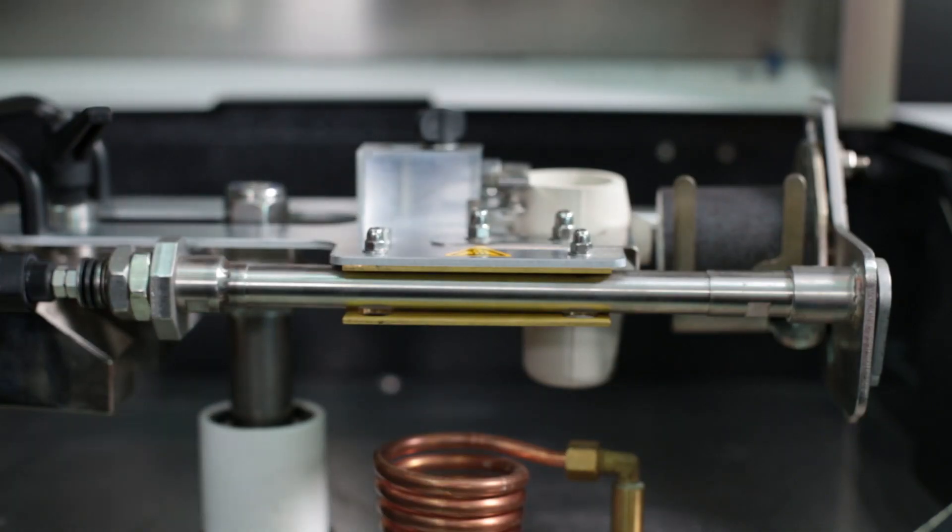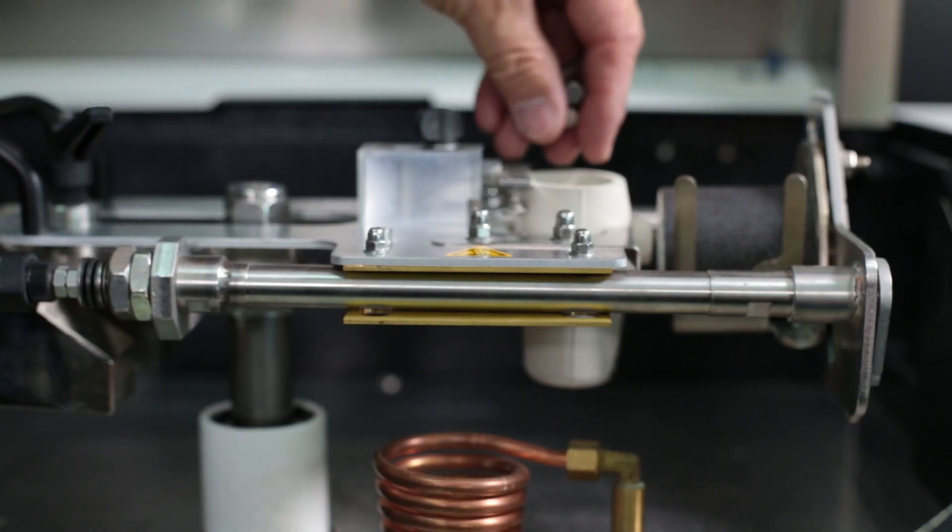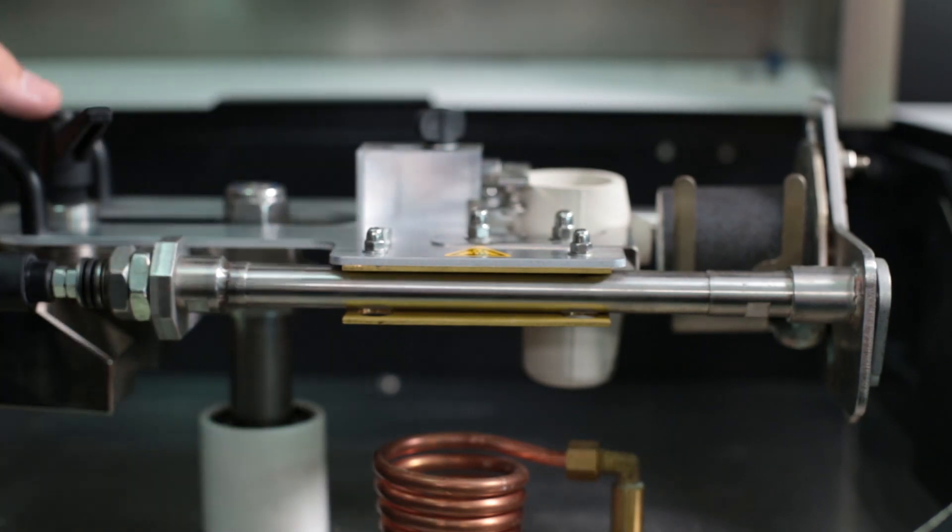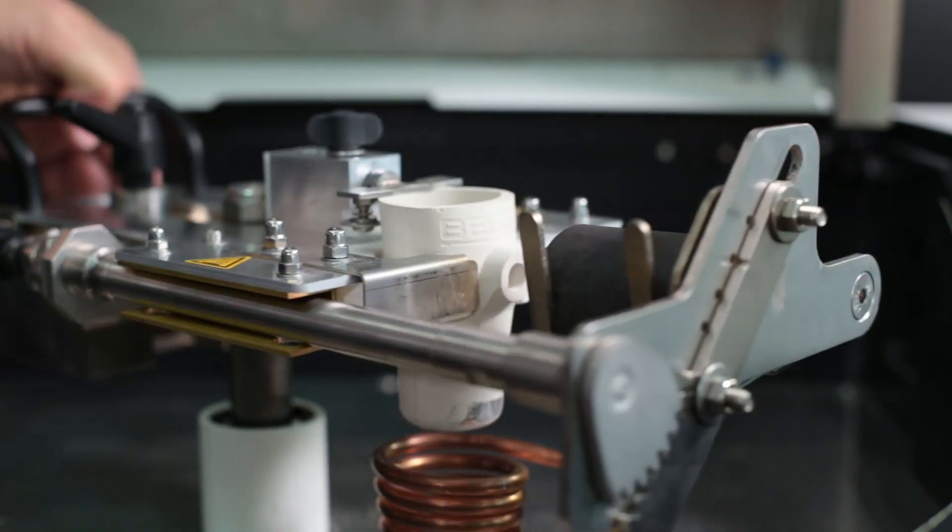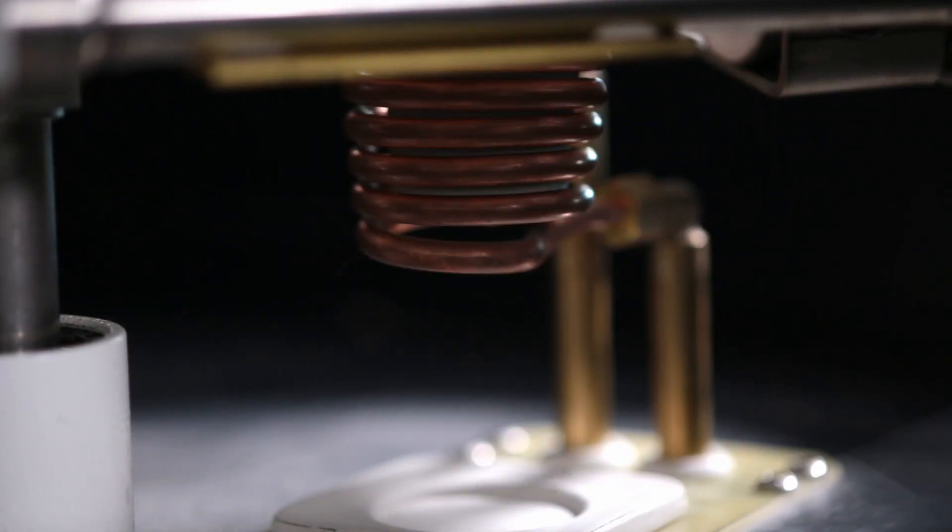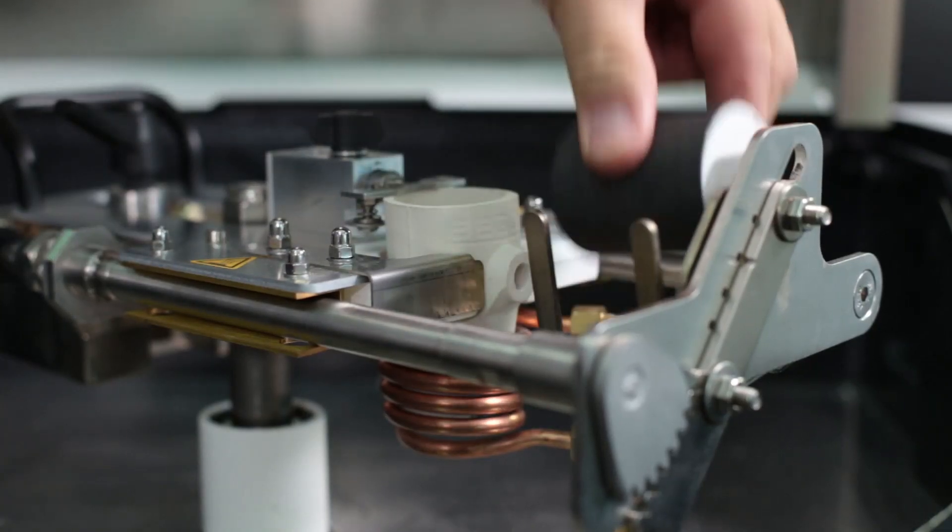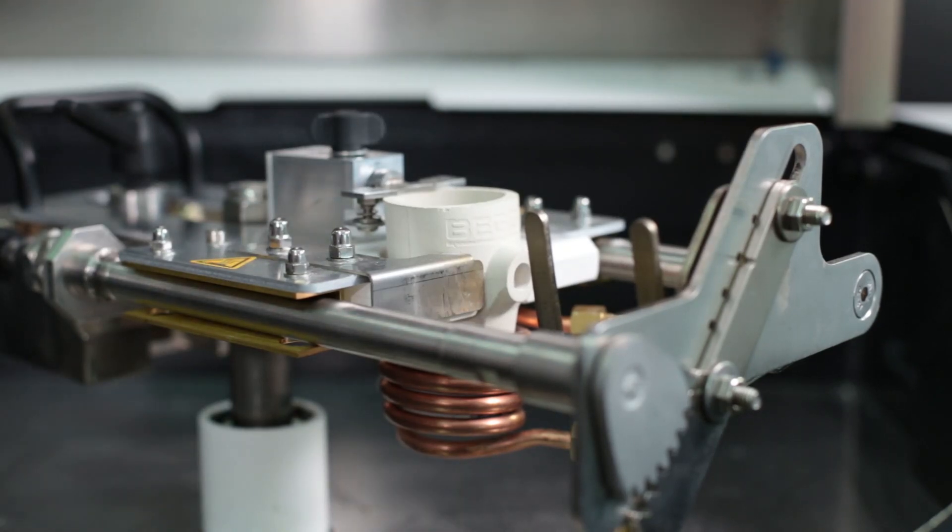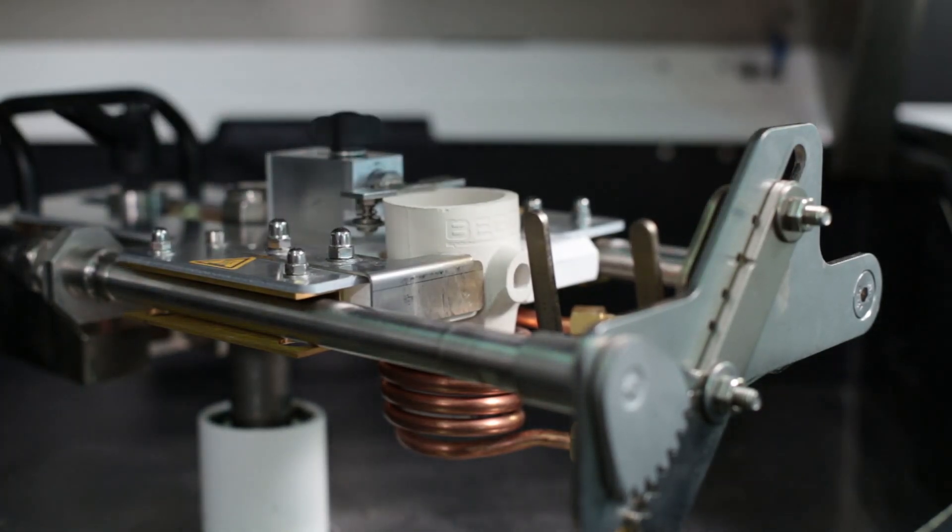Subsequently, the alloy, like here for instance Virenit LA, is filled directly into the crucible or insert. The horizontal crucible slider is pulled backwards by the handle. The crucible coil is pulled up with a side lever. The test mold, if one has been used, is removed. The lid is closed and the melting process starts automatically.